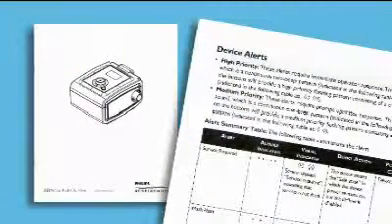During operation, System 1 has several alerts to let you know when the device requires attention. A continuous two-beep sound and a double flashing light pattern means the device needs service — the display will show a service required message. When you hear a pattern of single beeps and see a single flash pattern, check the visual display for information. A complete guide to alerts and options can be found in your user manual.